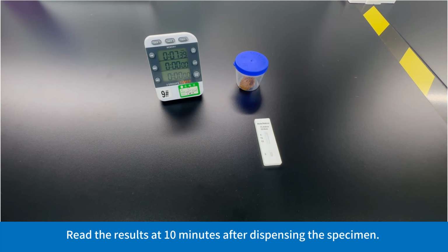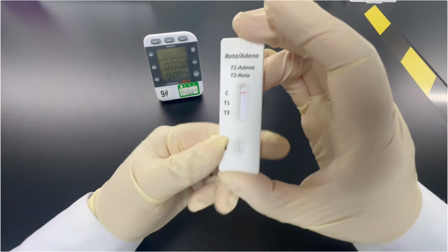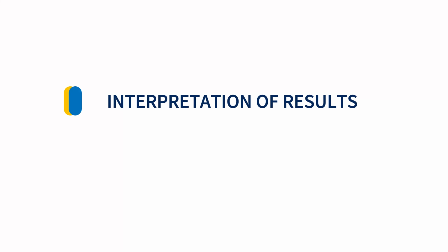start the timer. Read the results at 10 minutes after dispensing the specimen. Do not read results after 20 minutes. Interpretation of results.